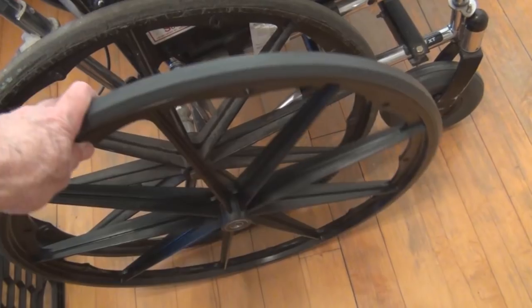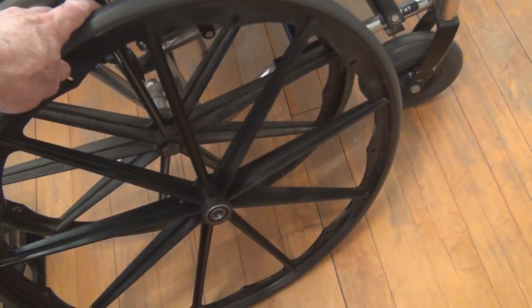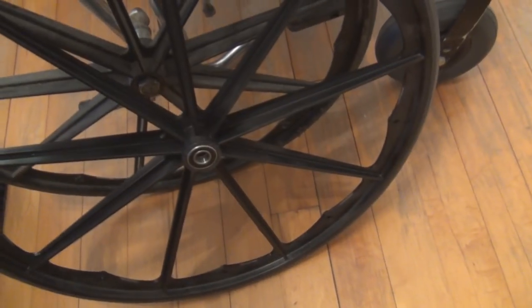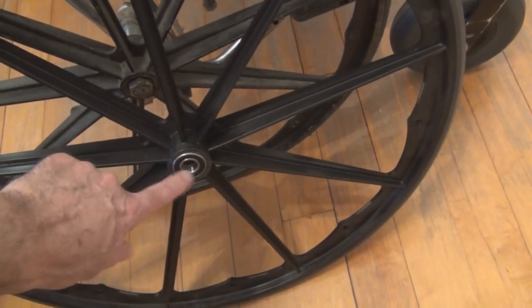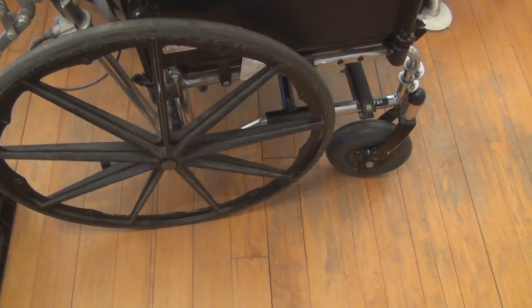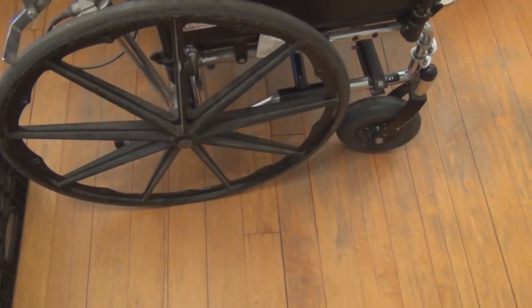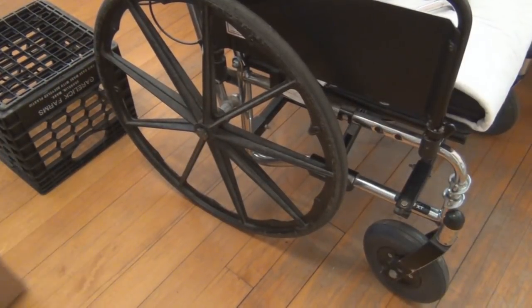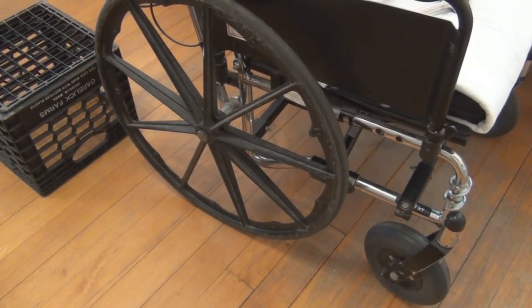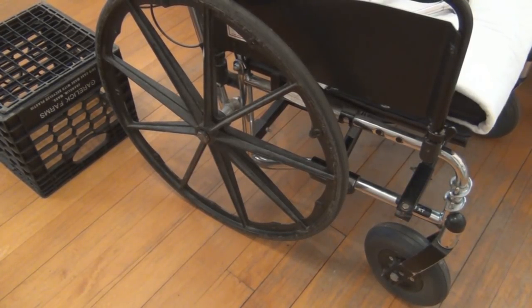$130 for these wheels. I thought you could just replace the tire, but evidently with this model wheelchair you can't. I thought I was going to have to also buy the bearings, but the bearings come with this wheel — so everything is included. Just remove the old one, put on the new one, and we're set to go.